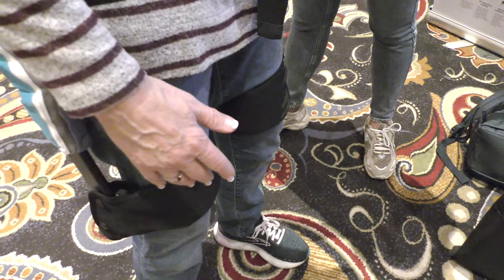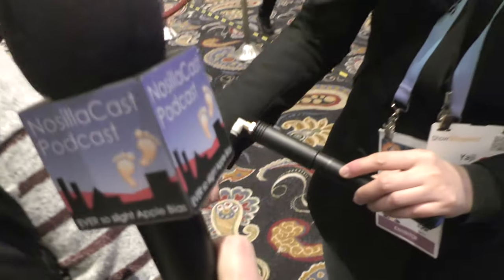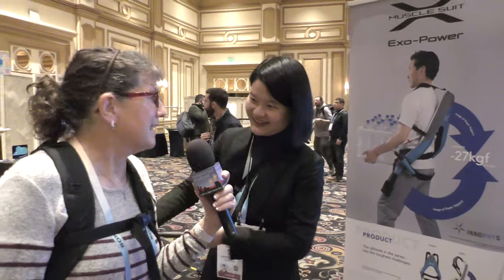There is another advantage to using the hand pump — the support force is adjustable. If you think the support force is too strong for you, you just need to press this red button, and that just lets the air release so you feel a little less. I like a lot of pressure on it — it feels good. I've been standing for a long time for the last three days. I might want to wear it all day.